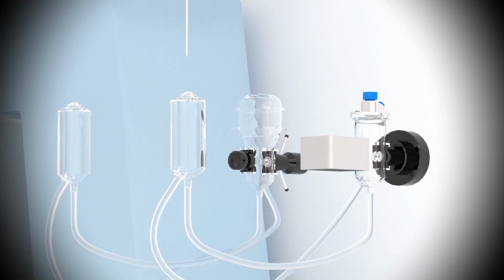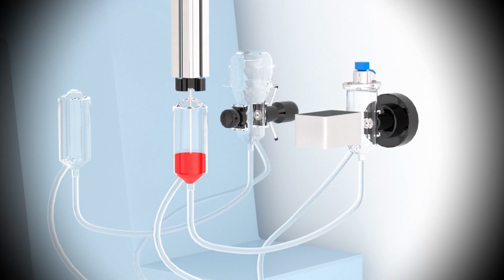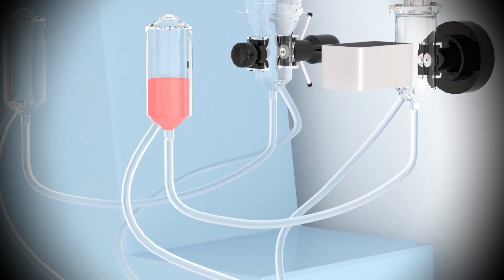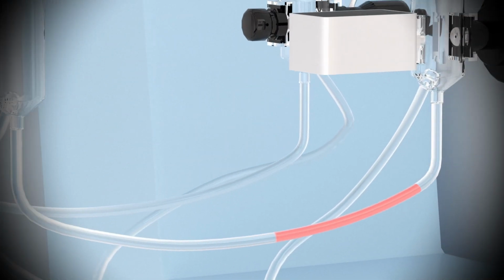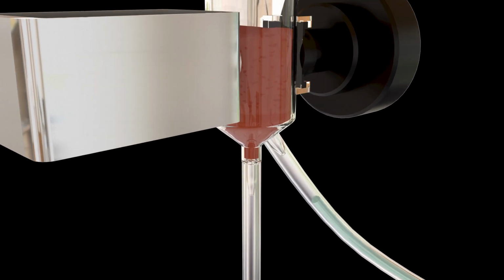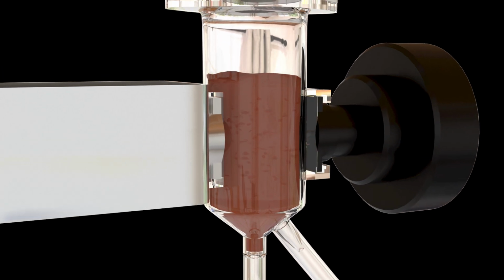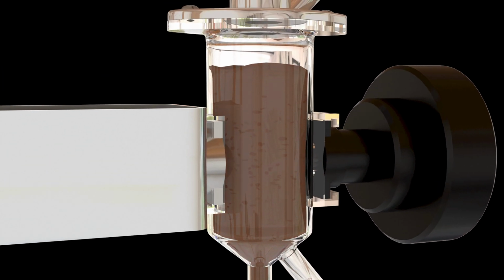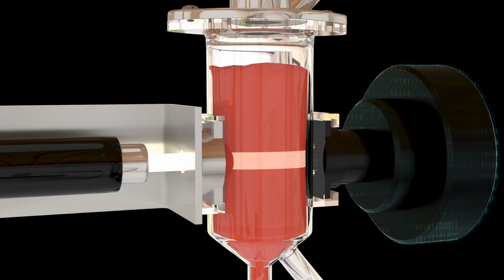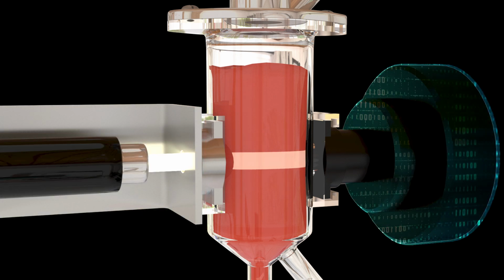A second portion of AWB, AL2, is diluted and then combined with hemoglobin reagent in the hemoglobin reaction chamber. This reagent contains several chemical compounds which first lyse the RBCs to release the hemoglobin and then react with the hemoglobin in several steps to change the color from a rusty brown to bright cherry red. This color is what is measured spectrophotometrically and is directly proportional to the amount of hemoglobin in the sample.